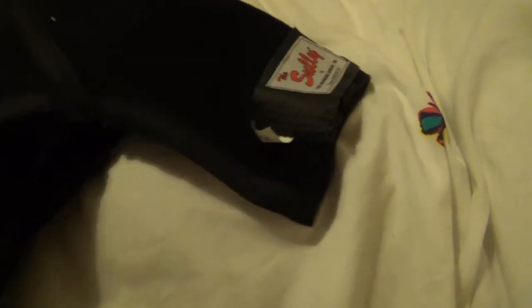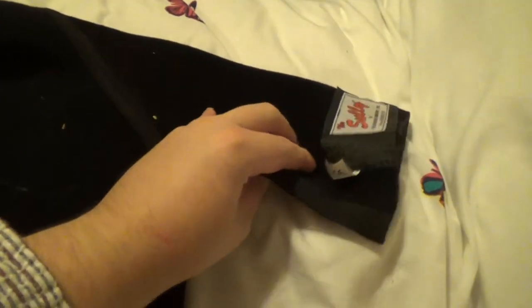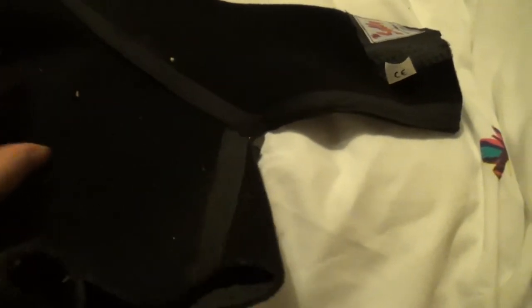So I'm trying not to use these anymore and I'm going to try and find a better solution. Basically you put this on — I have two, obviously one for each side — and you put it on like a plaster cast of sorts, and this goes around your chest. There are all these complicated straps that pull it in different ways, so you can have it so the arm can't move upwards or can't move downwards, all depending on which parts of the rotator cuff particularly need support that day. But I think it's a really bad design — the lining causes huge irritation, they are deliberately tight, it's really hard to get on or off, and I've actually injured myself putting this on. So not one I wear anymore.